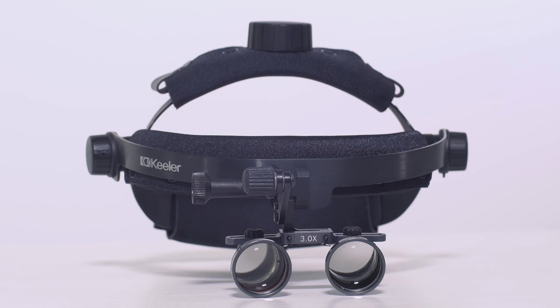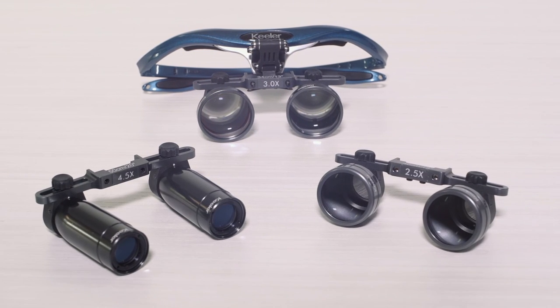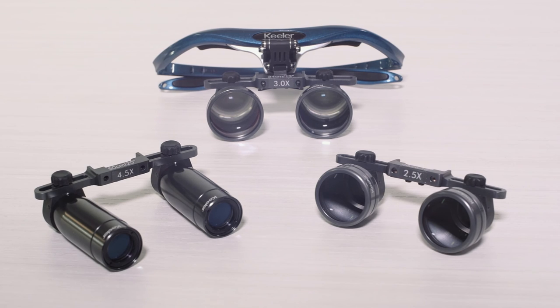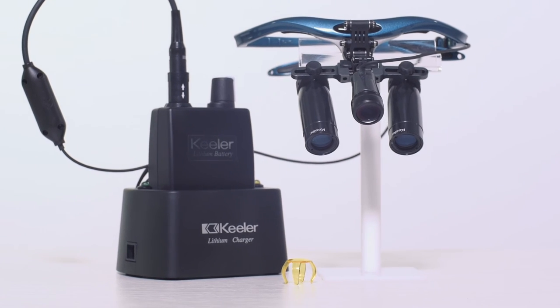There are five magnification options: 2.5, 3, 3.5, 4.5, and 5.5, each made to accommodate the requirements of different surgical specialties.